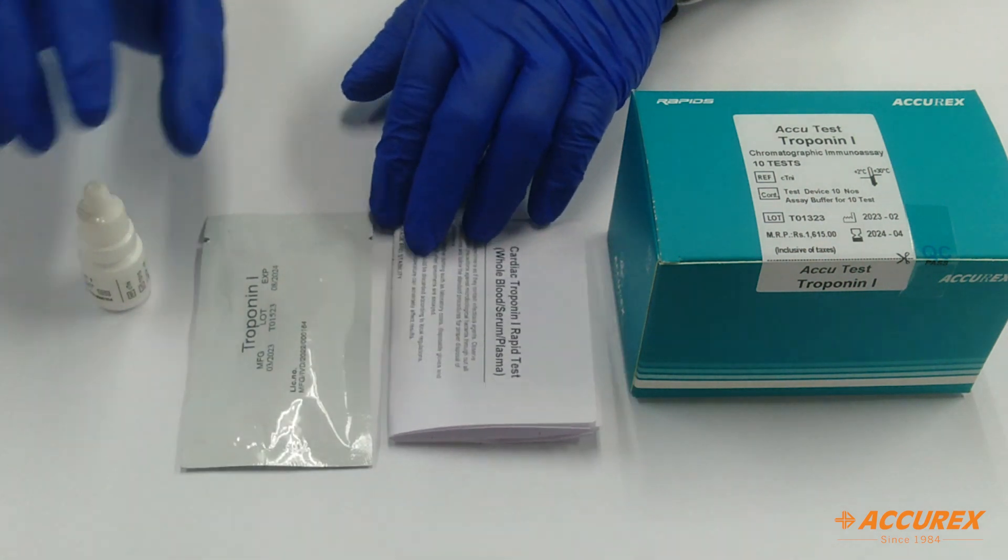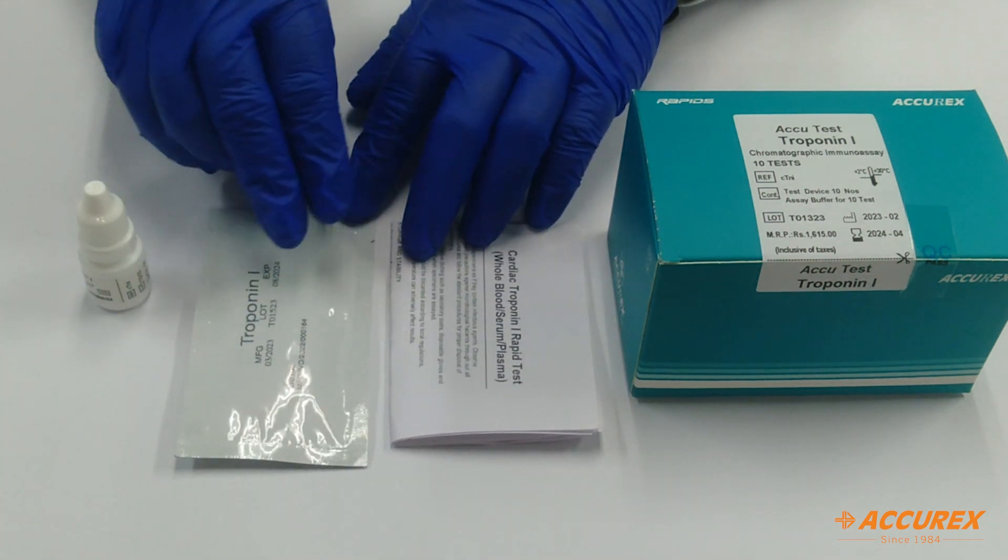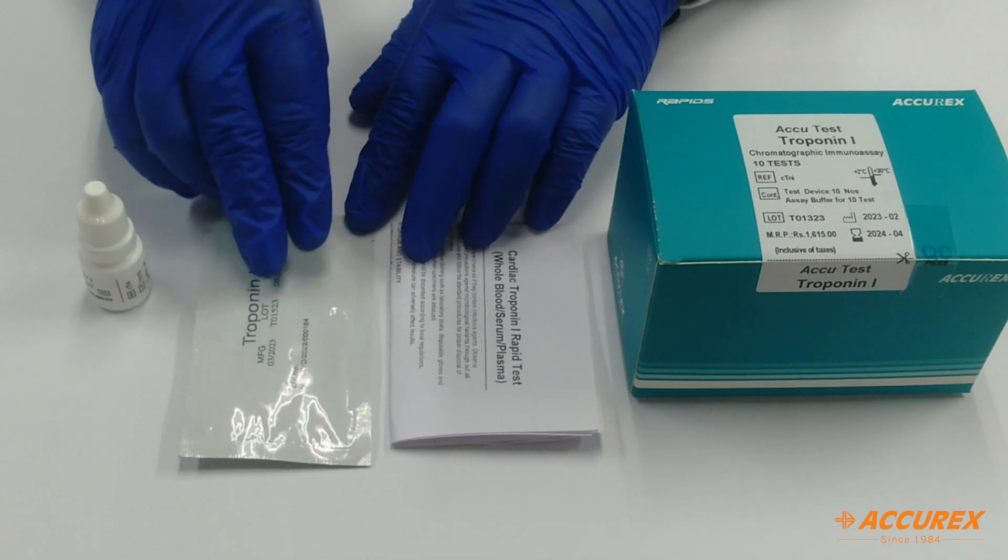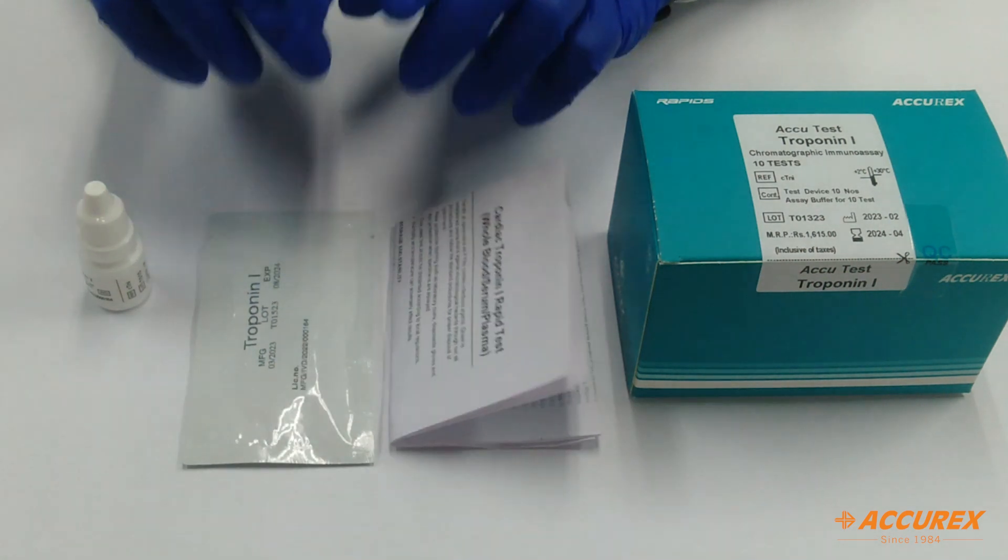For the specimen, you can use serum, plasma, or whole blood. For whole blood, you can use EDTA sample or fingertip sample. Next we will see how to do the testing procedure.